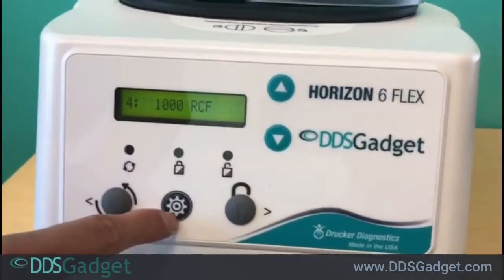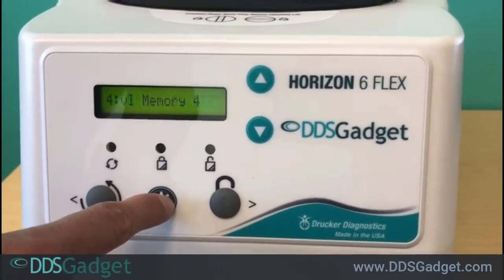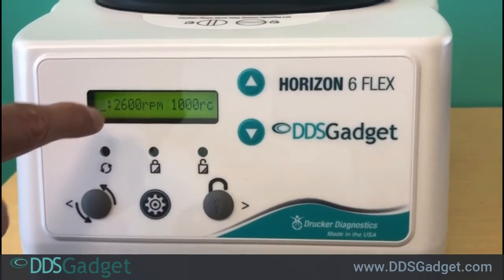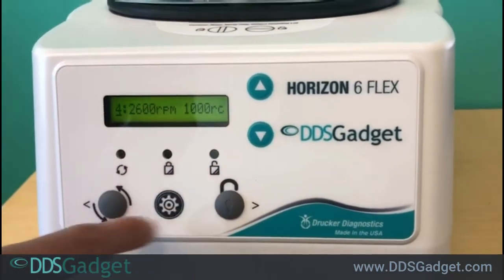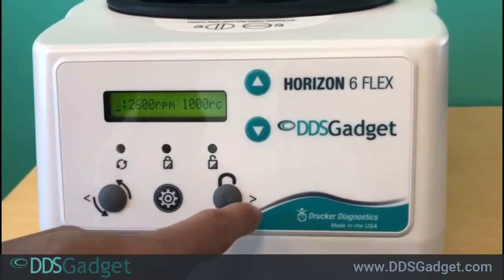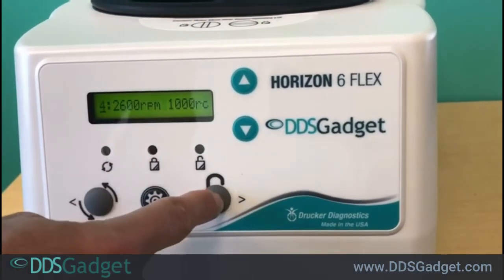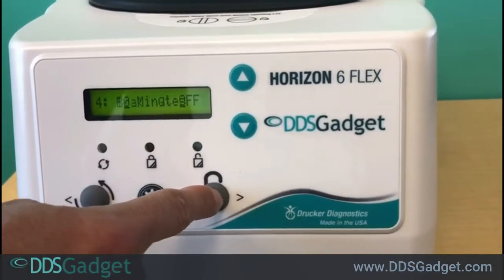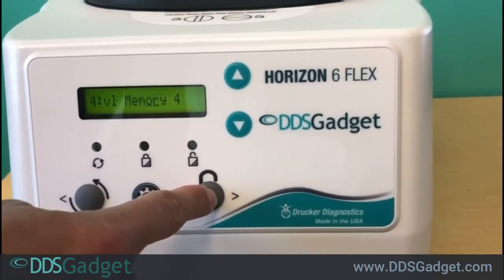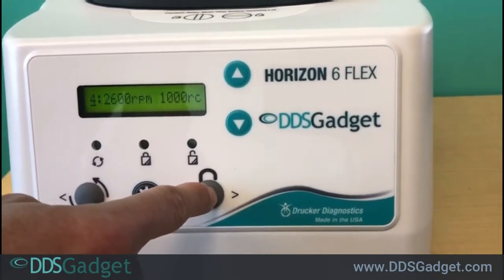If we now want to change the RPM, the time, and the name, we press the little gear button in the middle of the machine. That will open up the cycle to be able to customize it. You move through the different customization settings by moving the right and left arrows, which act as the start and lock buttons when you're in gear mode. Cycling through, you can see there's the minutes, the braking, the beeper, and the name.